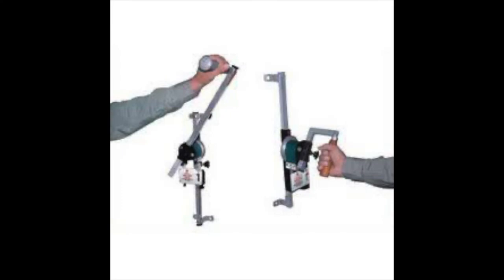The shoulder wheel or bar shoulder wheel is a very easy-to-use device. It can be done by the patient on their own in the physiotherapy clinic.